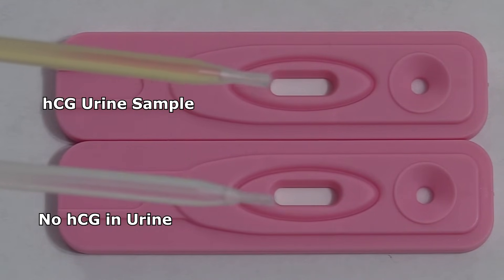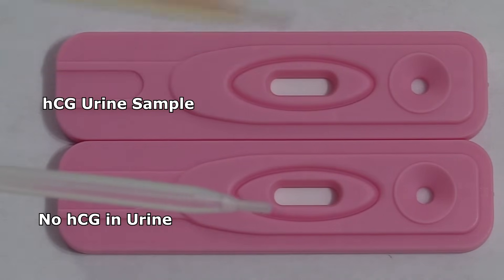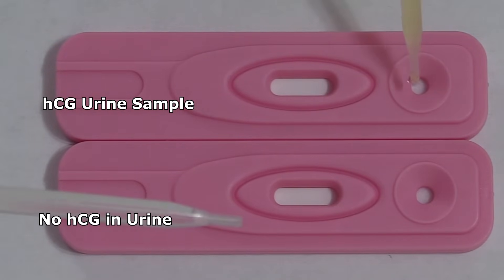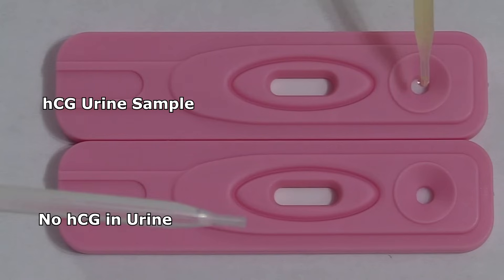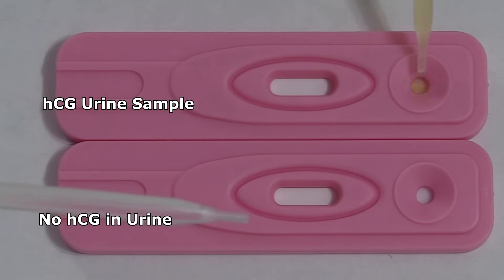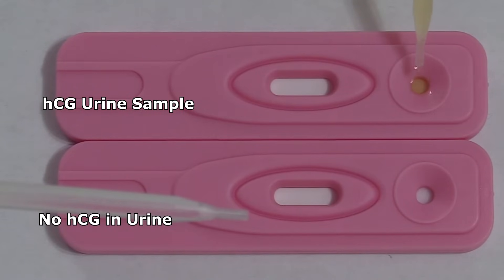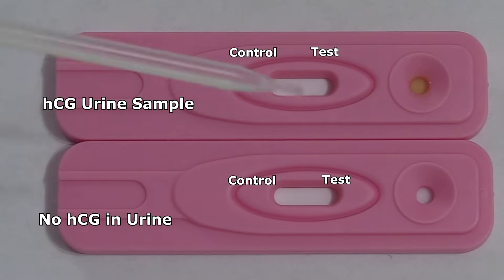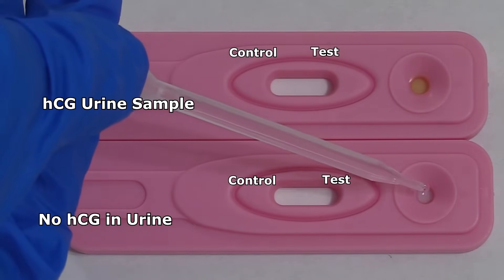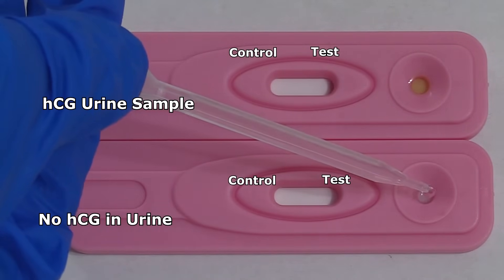What we're going to do is add three drops of urine to each test. We'll add to this top one — this is the urine that has the HCG — one, two, three. And then we'll add a drop here: one, two, three.